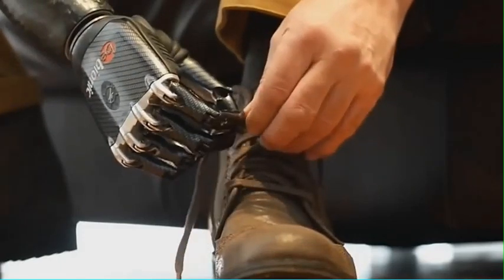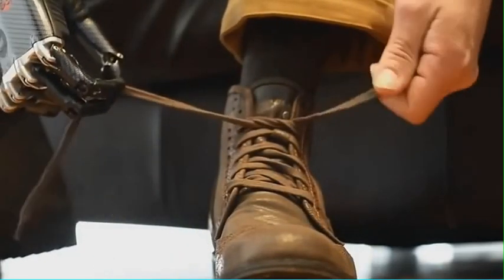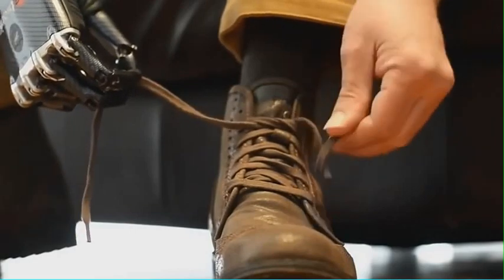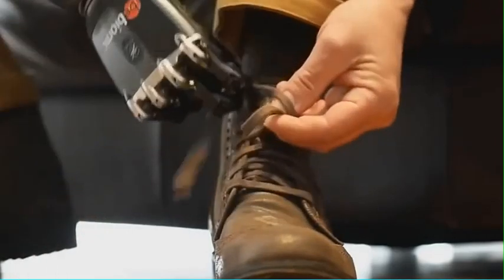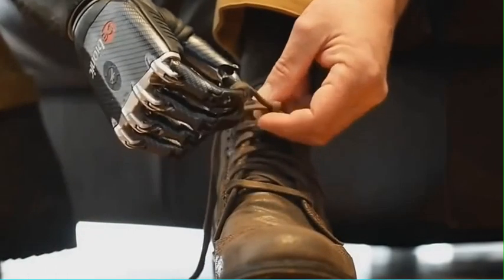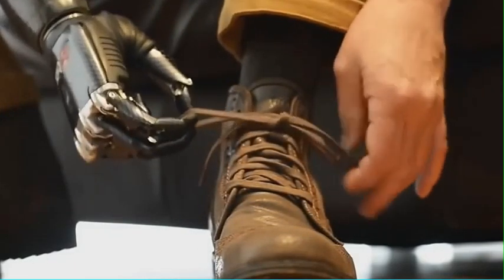I get it to the place where I need it to be, give it a closed signal, do my thing with my left hand while holding it in an open signal, then come back to a closed signal and pull.